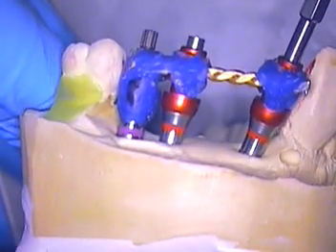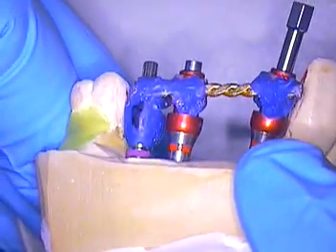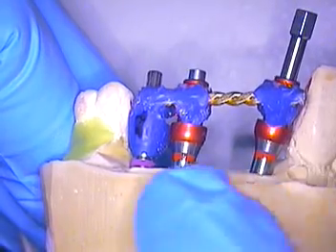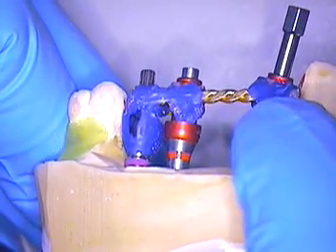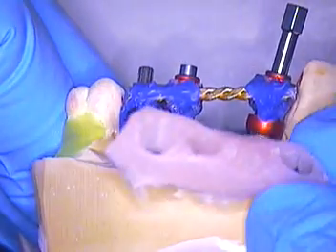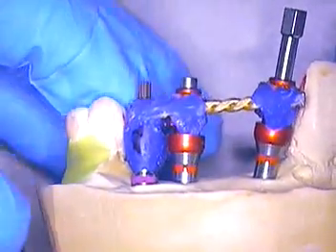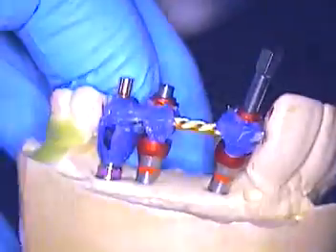You're looking at a Straumann combination case. It can be kind of difficult to understand at first, but when you've got to link implants together to make a bridge, you've got to have a method of linking them not only in the mouth but also in the analog. So what I've done with this case — here on the model — I've removed the soft tissue, the gum tissue, because I want to show you how this all looks. Let me move this aside and undo this segment.